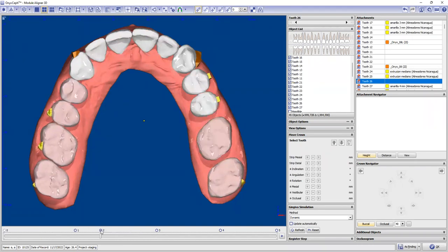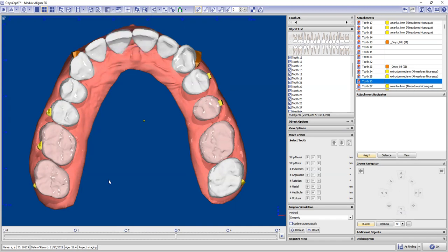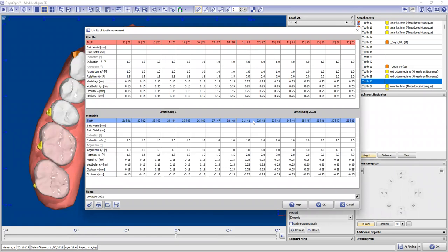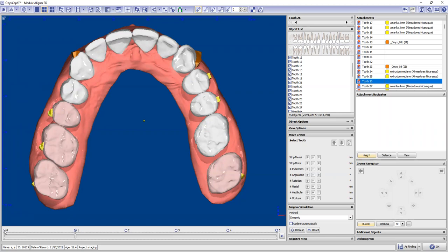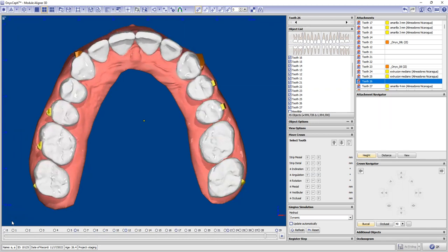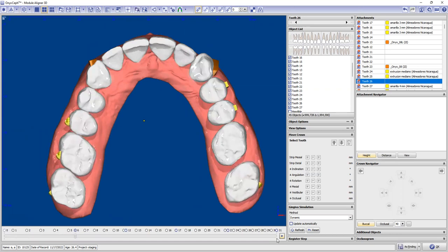Then we need to create steps - it's pretty easy. To create steps, you need to select your limitation of movements. You click here, go to limits of tooth movement, and I already have different types of limitations here. Select the one you want - this is the one I regularly use, the most commonly used. Click okay. Teeth in pink and white means some of them have already passed their limitations. So you go to zero and start pressing F8 and F9, creating the steps automatically. You can see here - F8, F9 until you finish. Obviously this will be a long case because we are making a lot of staging.